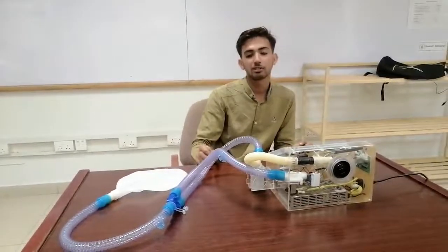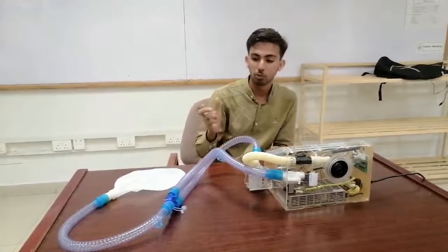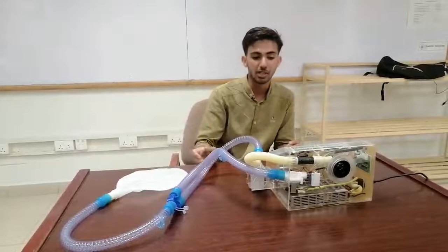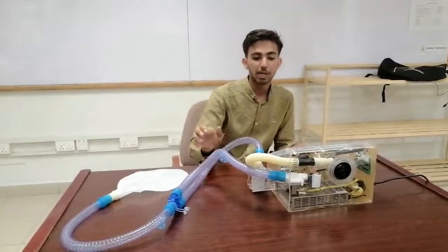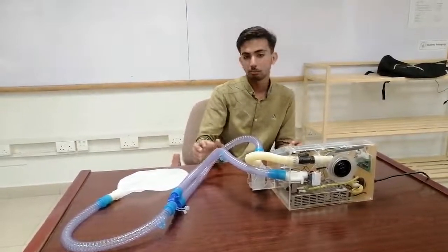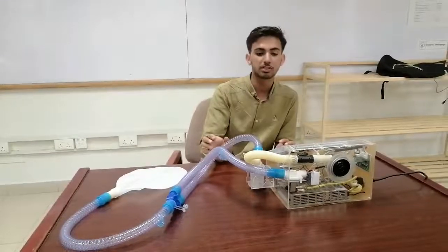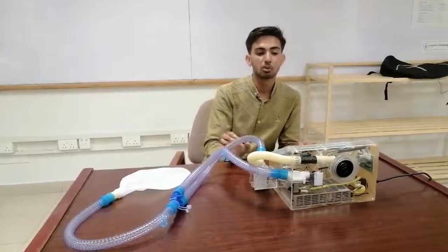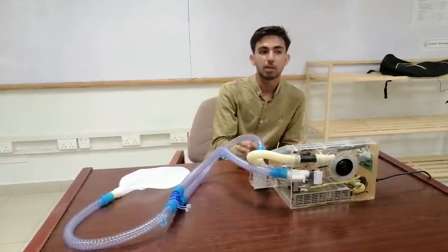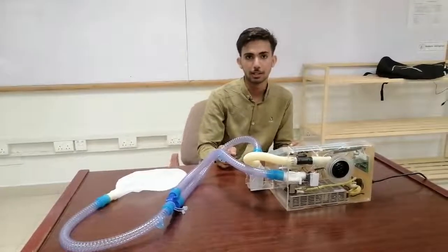A humidifier is also added in this project, which is used to humidify the air being delivered to the patient. The real-time data from the flow sensor is the main feedback system of the project, which is used to control all the set point parameters across the selected modes.